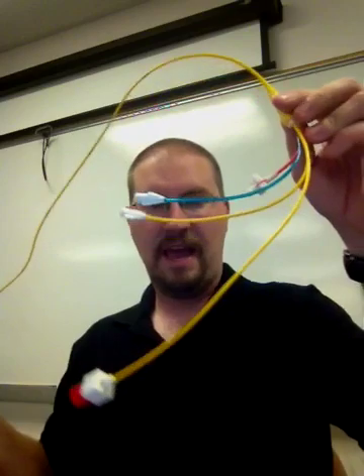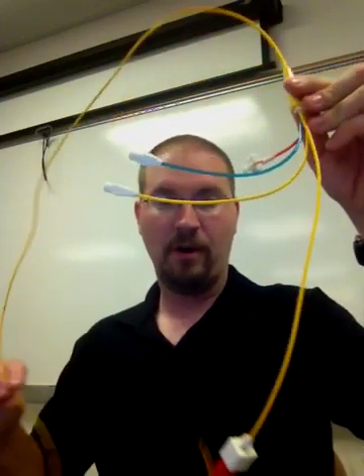Here I have an example of a pulmonary artery catheter. The way we insert it is very similar to devices we've already talked about, such as the arterial line or the central venous catheter. It's inserted similarly to the central venous catheter because it goes into a vein initially. They use a modified Seldinger technique — using a needle and then threading a catheter over the needle. A lot of times they'll go into the subclavian area, sometimes the femoral area.